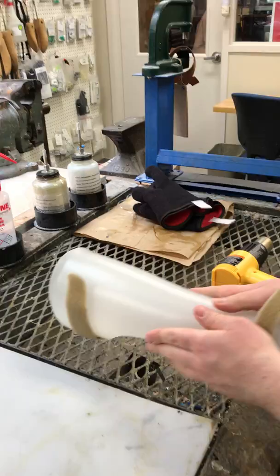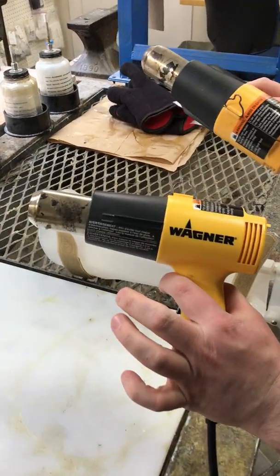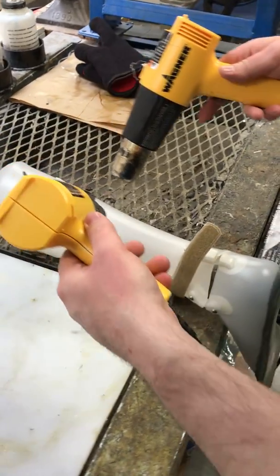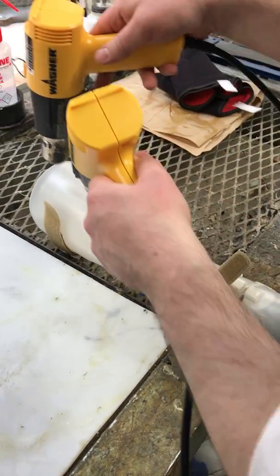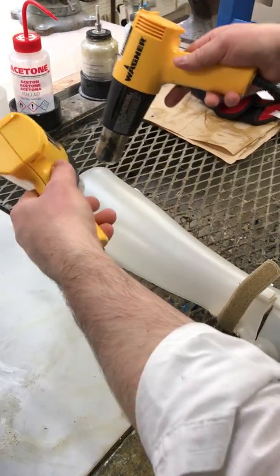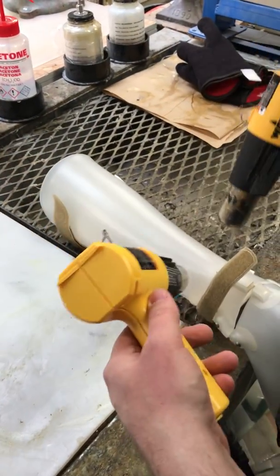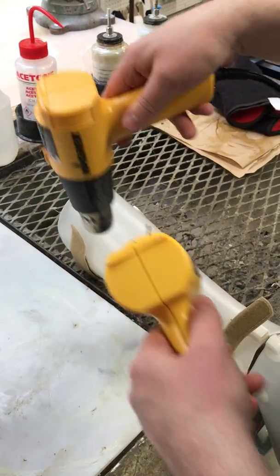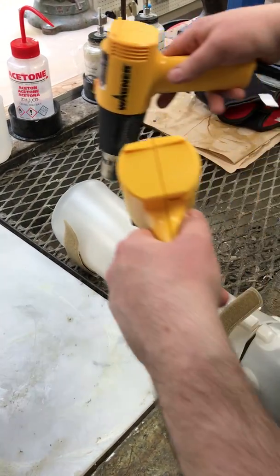You come back and place it down, get two heat guns, and then start heating either side of the back of the plastic — a little in the true posterior but definitely on the sides — and heat it nice and evenly, however you want to, on either side.